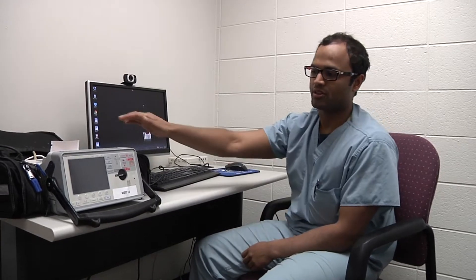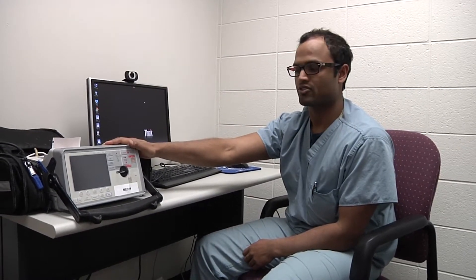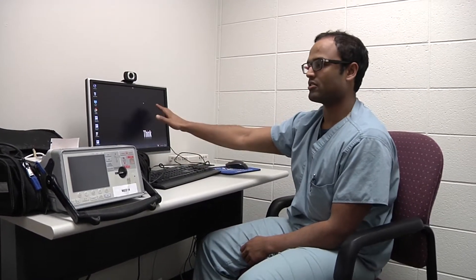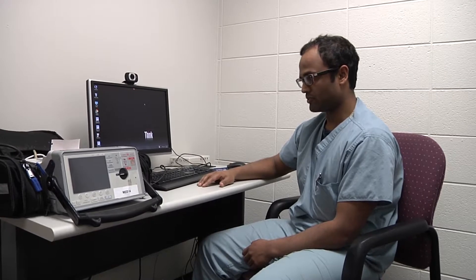Hi, my name is Jamie. I'm with the Medical College research team. I'm going to do a quick run-through of how to upload cases from the card of the Zoll monitor to the computer, the desktop, to be uploaded to the Milwaukee County server for review.